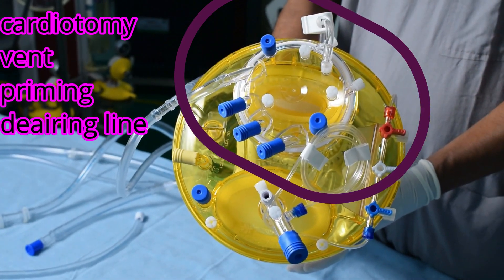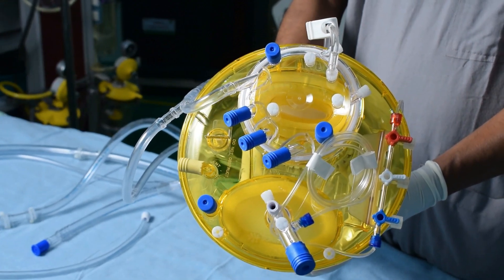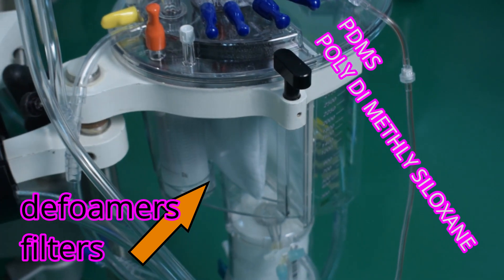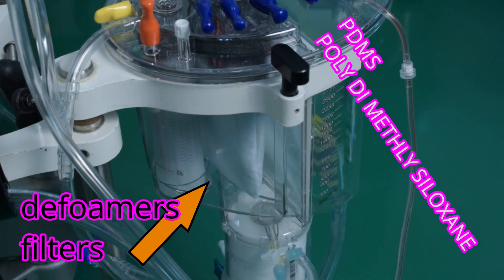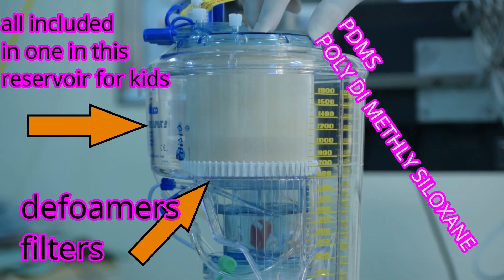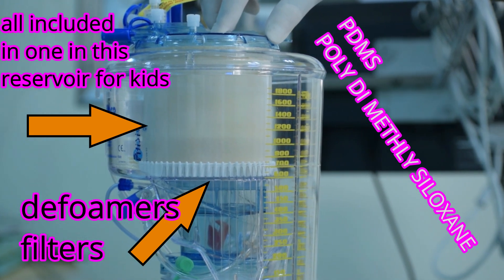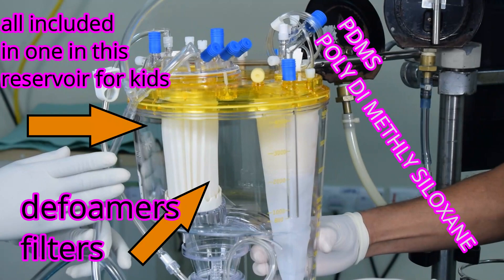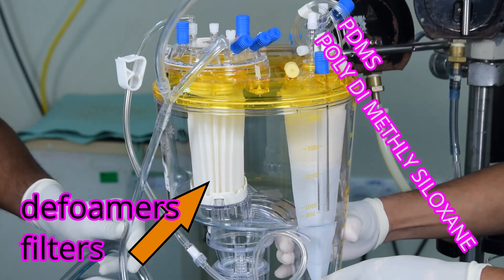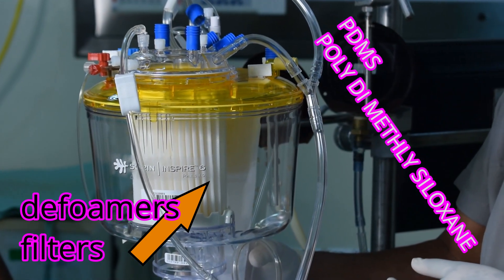This open system provides an unlimited source of air that could potentially be delivered through the circuit. Defoamers are silicon anti-foam agents that disrupt bubbles and return blood to a liquid phase. Defoaming or anti-foaming agents break up or reduce bubbles that form at the blood-air interface. The most commonly used agent is polydimethylsiloxane, a silicon agent which ruptures bubble membranes and ultimately disrupts the foam, transferring blood to the liquid phase.